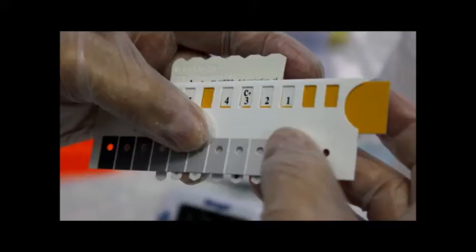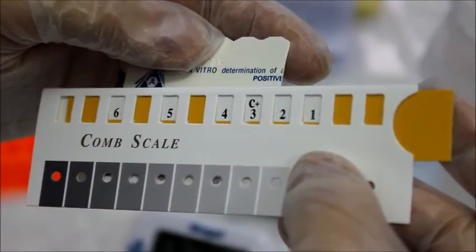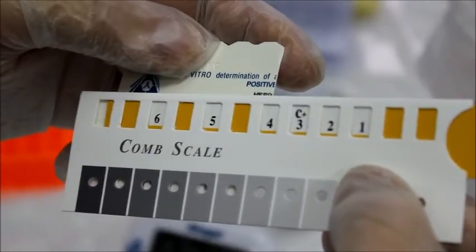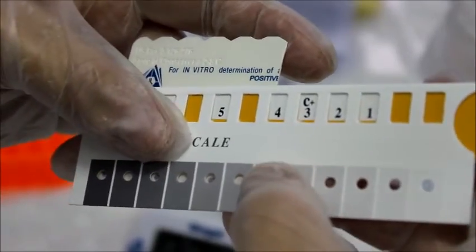While holding the slide, find the tone of purple gray on the comb scale that most closely matches the desired test result spot, one of the lower spots. In other words, compare the color tone to the test spot with the positive reference spot on the comb scale.